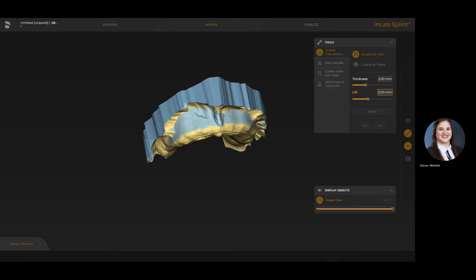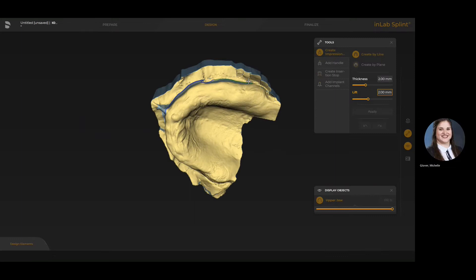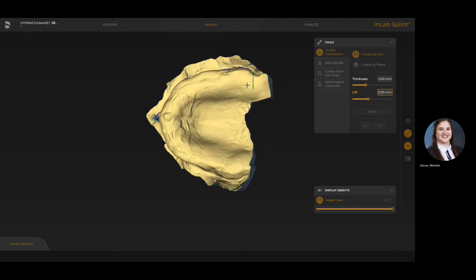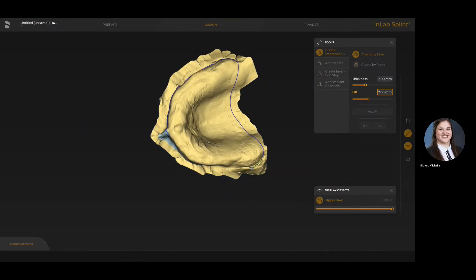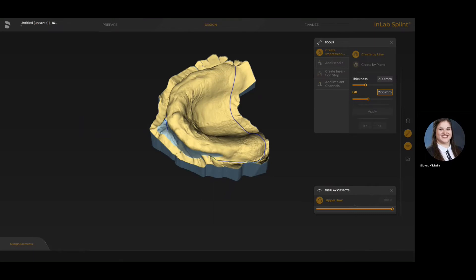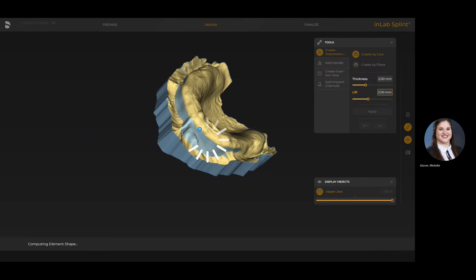I personally like to use create by line, where I'm double clicking with my left cursor to start, then using a single click to tag down the line, and I can hold my left cursor and rotate as needed. If you ever need to go back a click, just right click once and it will take you back one mouse click, allowing you to fix up any areas you see fit. You can go over frenum areas with individual clicks which helps curve the line. When you get to the starting point, double click to finish and that will define the border of your actual tray.